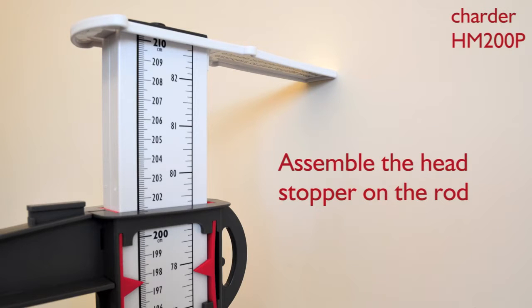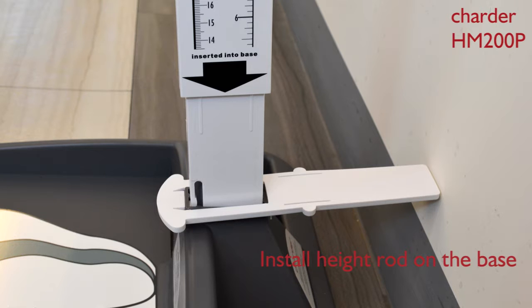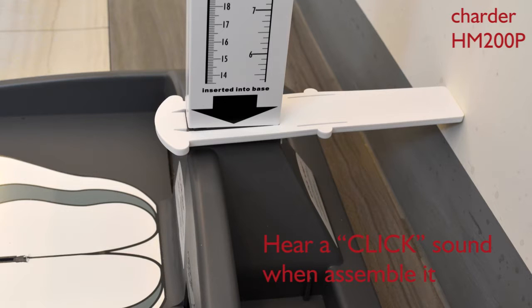Assemble the head stopper on the rod. Install height rod on the base, following the arrow point direction. It's well connected when you hear a click sound.